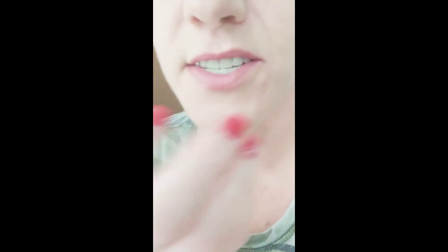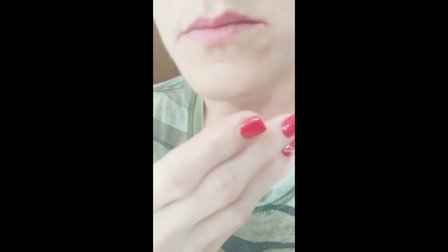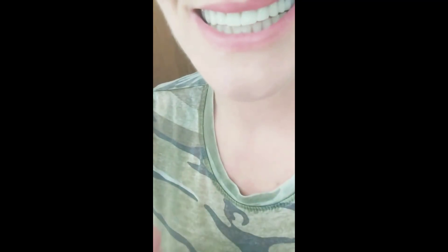I like leaving a little bit of that liner on — unless it's really thick, then I'll trim it. When I leave a little bit on like I did here, it actually creates like a pillow for my gums and lifts the denture up a little bit. I don't have to worry about it floating around in my mouth — as you can see it's stabilized and creates a suction. Now it's comfortable, and I already have it on my upper too.